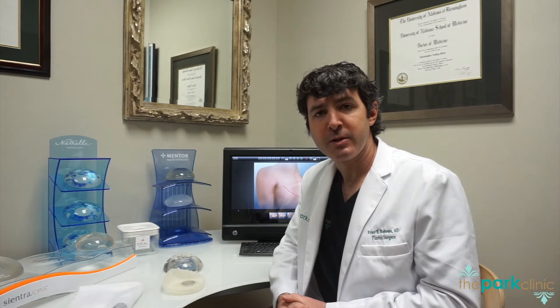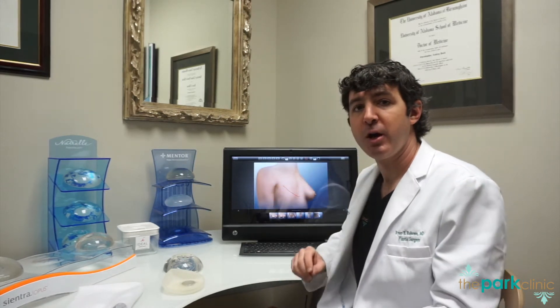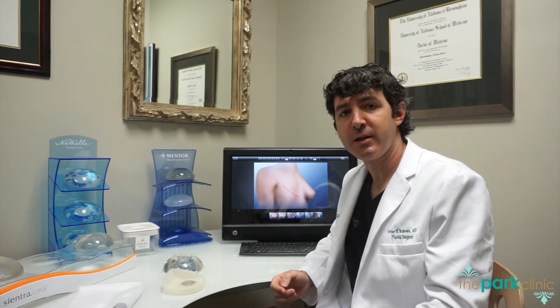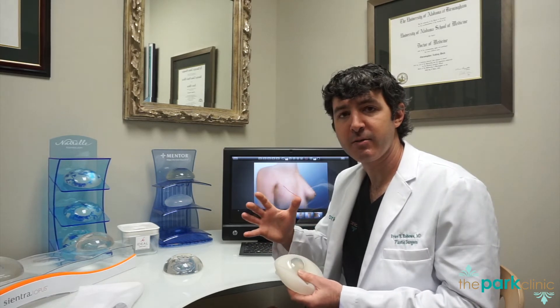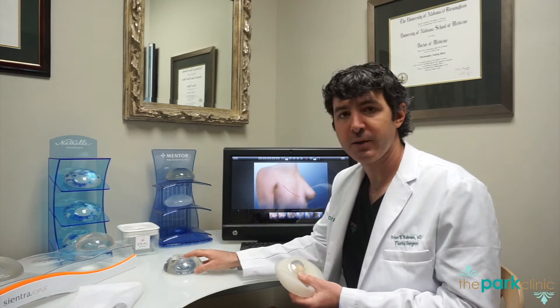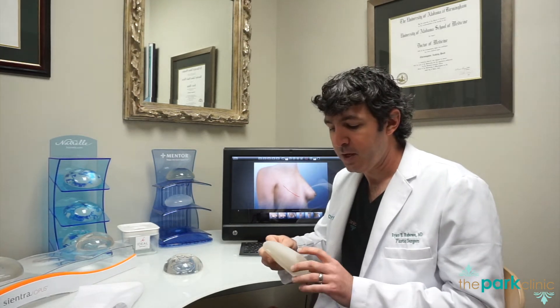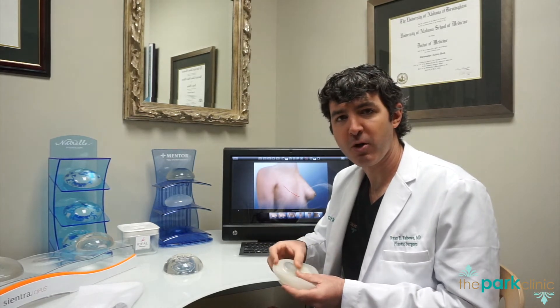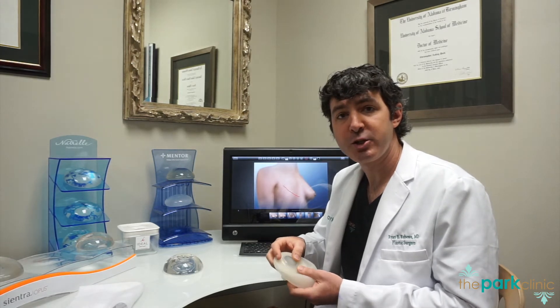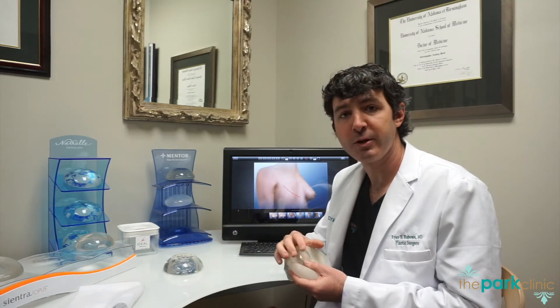This will be determined by the type of mastectomy you have. If your surgeon chooses a skin-sparing approach, where you remove some skin in addition to the nipple, then you will need to start with a tissue expander to expand out the skin and create a new pocket for a breast implant. The expander is shaped basically like a breast, but it's a little bit more firm and harder than a natural-feeling breast. Its job is to expand the skin out and make new room for the breast implant, which will look and feel more natural.